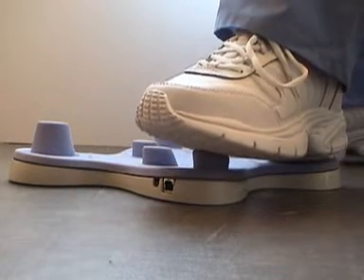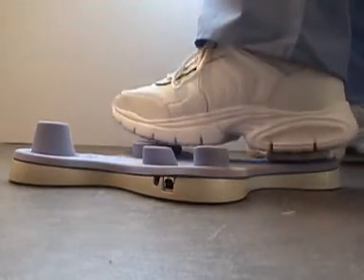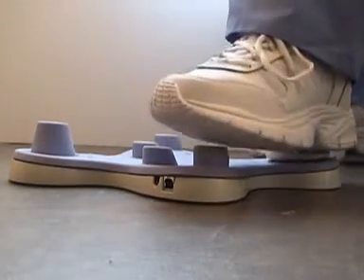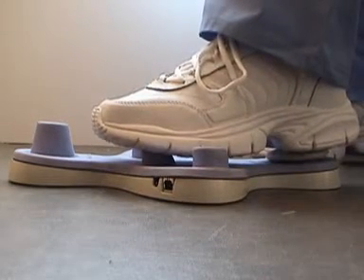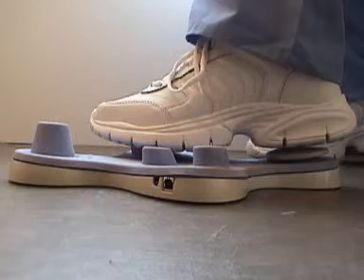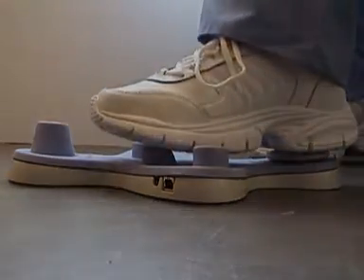To activate numbers one through four, press and release: one, two, three, four. To activate numbers five through eight, press and hold down for more than one second: five, six, seven, and eight. For numbers higher than eight, we'll talk about that with your software.